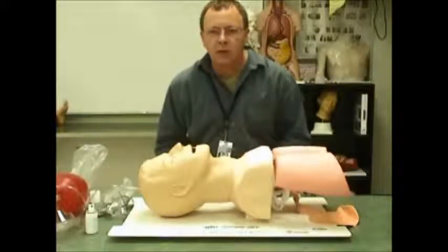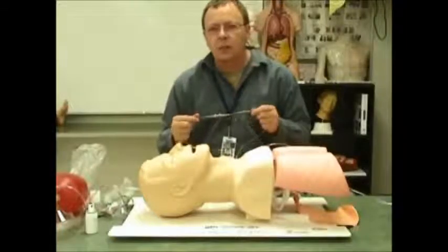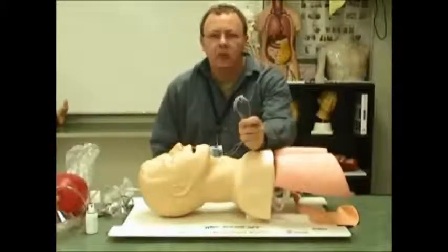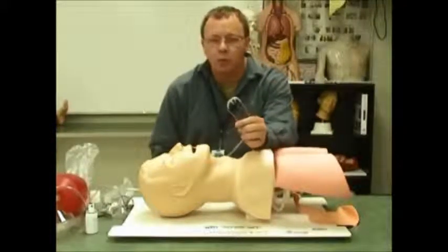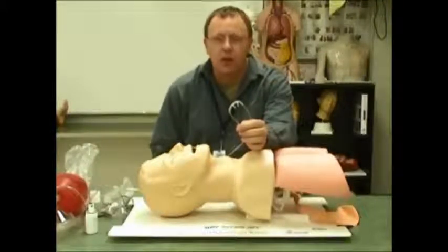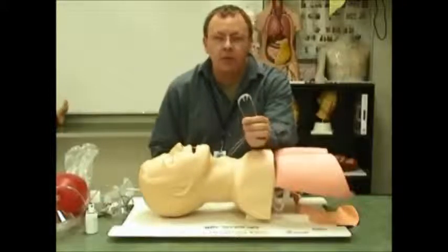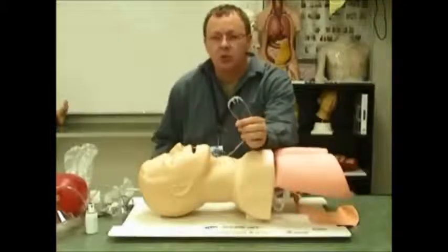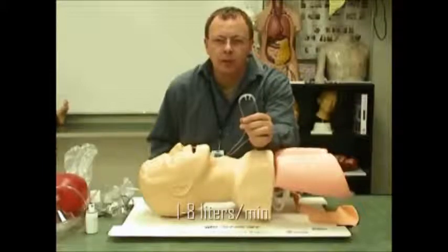The nasal cannula is designed to provide low flow oxygen for a patient that is stable. The nasal cannula will increase oxygen percentage delivered from a room air concentration of 21% up to 24 to 40%, depending on the flow rate. Through the oxygen source, we can give a flow rate between 1 and 8 liters per minute.